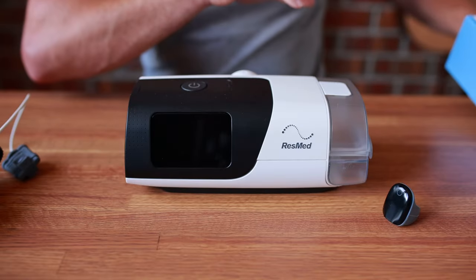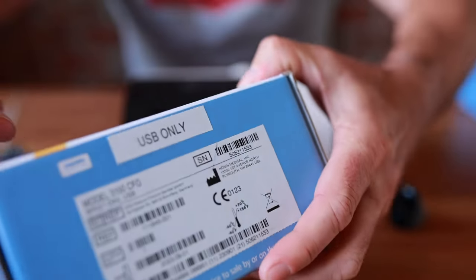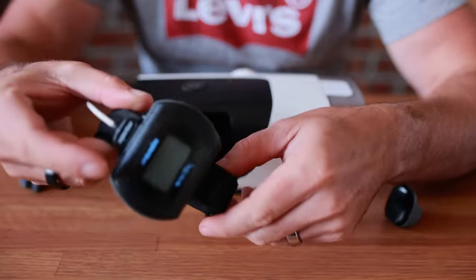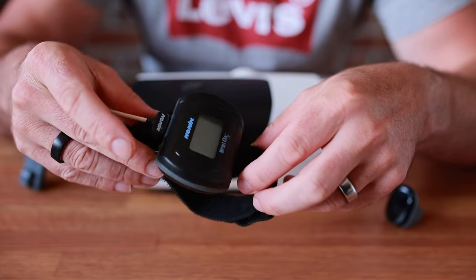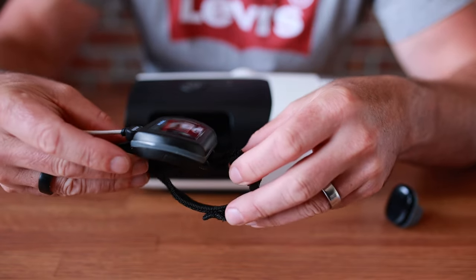I made a very expensive mistake — well, I didn't actually make the mistake as it was advertised as the Bluetooth one, but I got sent this one here, which is USB only. It was about $1,500. So I've blown $3,000 on these things now, just to show you that it says 'Bluetooth connected.' Very, very dumb.